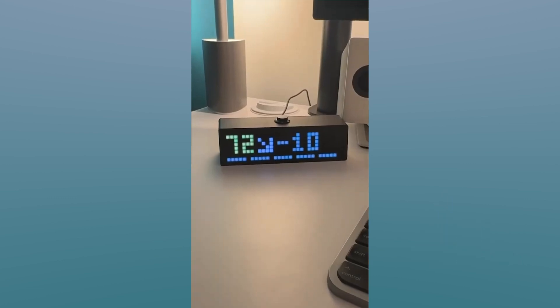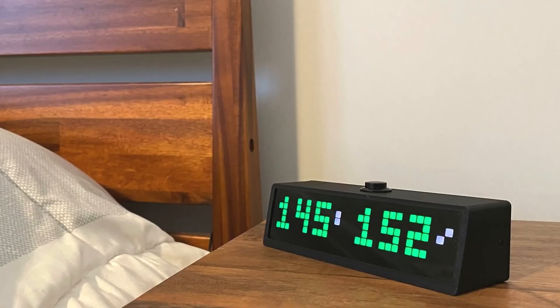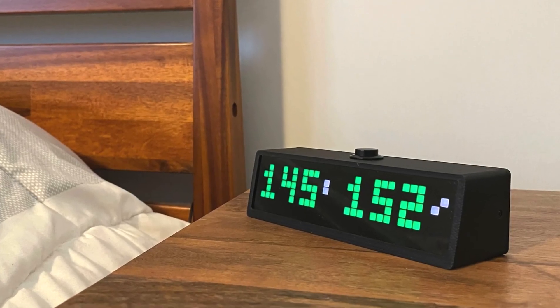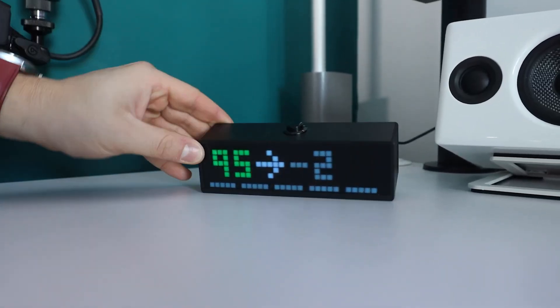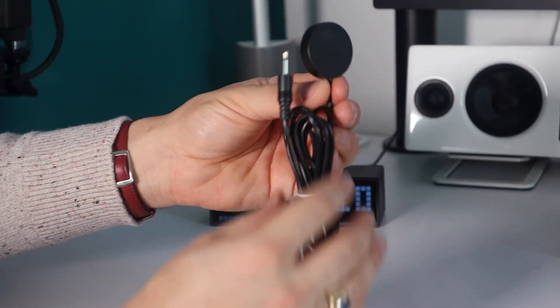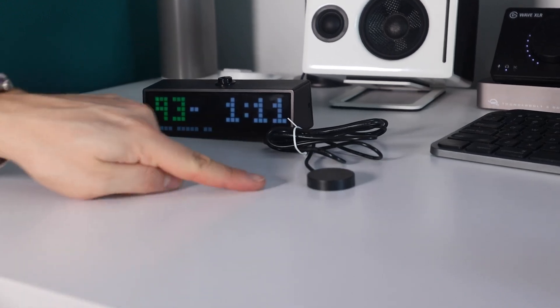The last thing I want to talk about when it comes to alerts are the other devices I'm using. On top is the SugarPixel — that's an incredible device built for showing glucose readings. It also does sound alerts that are very loud, in case you have a child or yourself don't wake up from alarms — this will wake you up. They're ridiculously loud, they're optional. And there's a snooze button on top, plus a vibrating puck for anyone with hearing impairments.